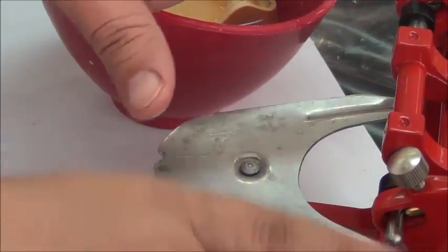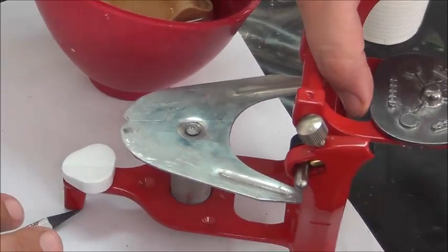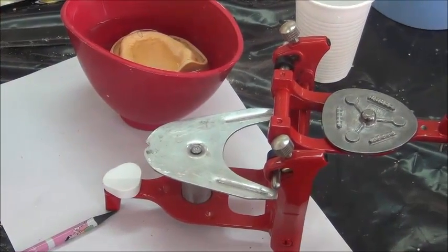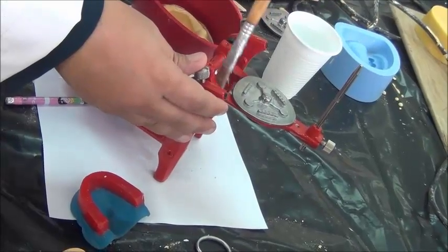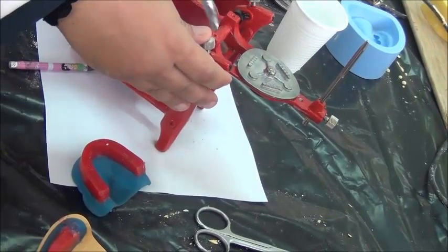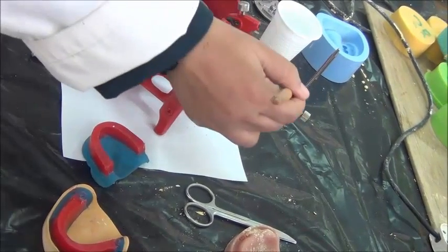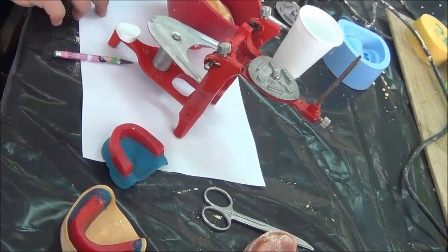All of the members of the articulator are painted using Vaseline except the ring, because we want plaster adhering here. But we don't want plaster adhering on the sides of this, so we paint the articulator using Vaseline. Vaseline is placed, avoiding the ring area where we need retention.